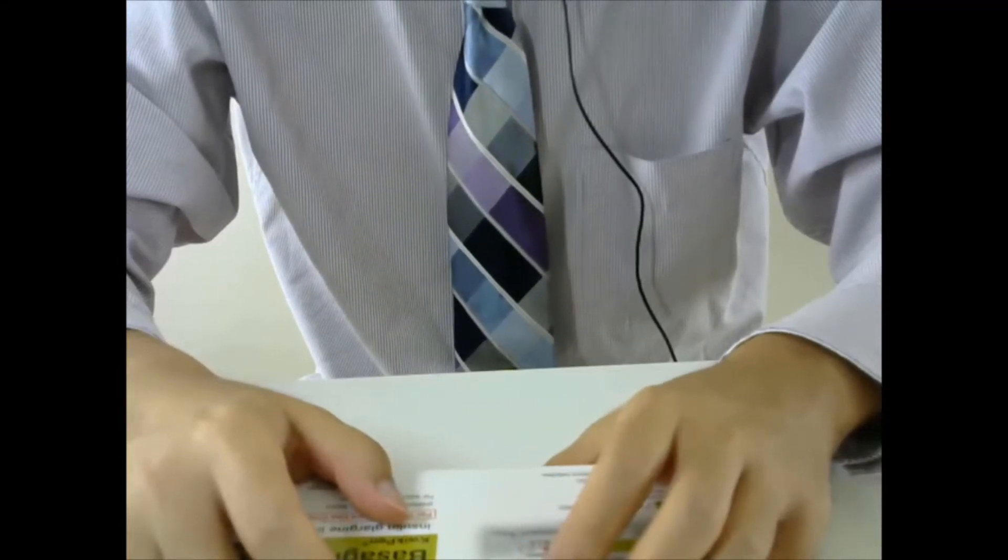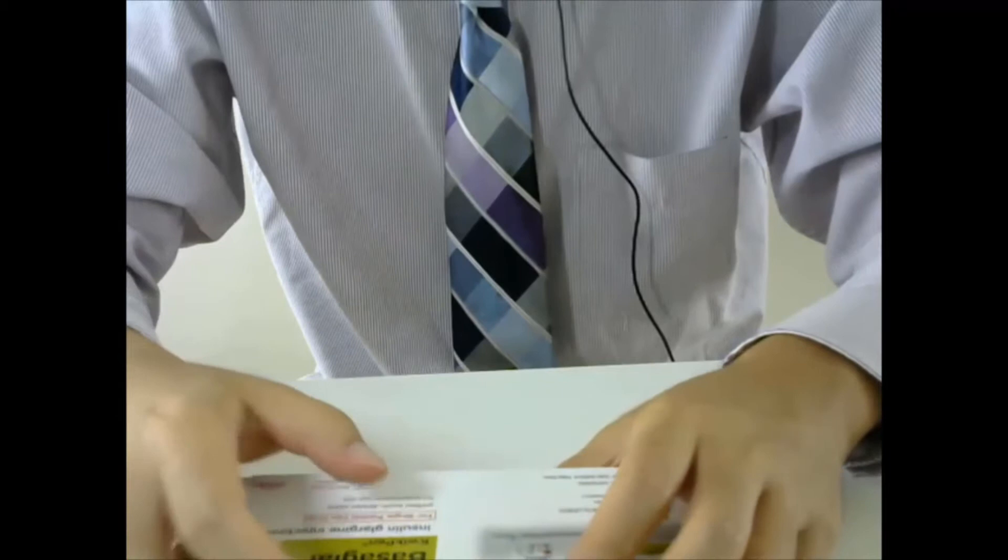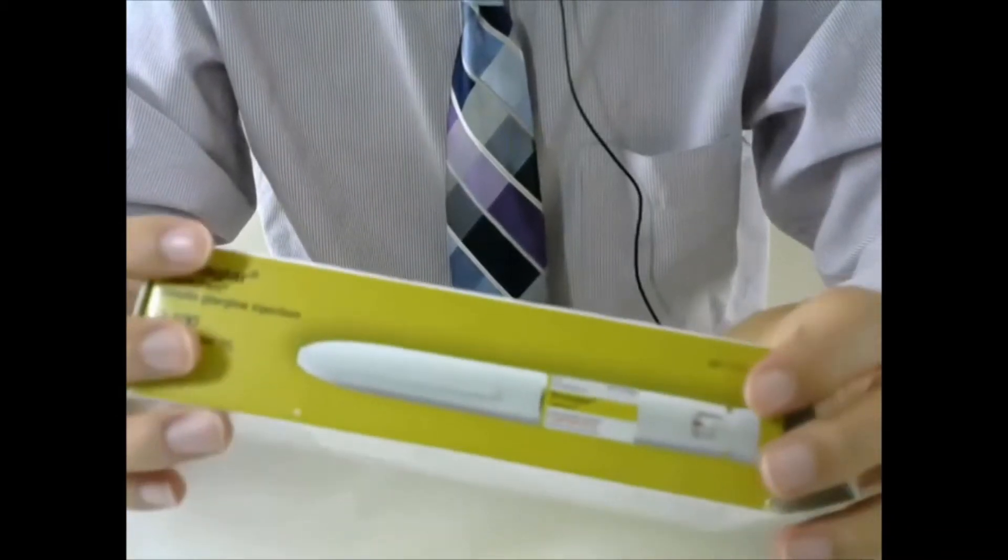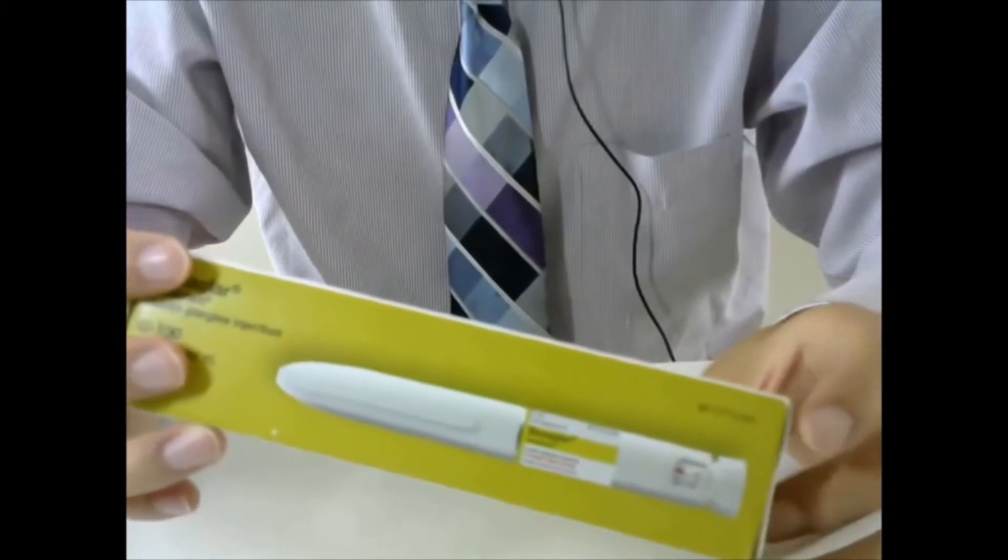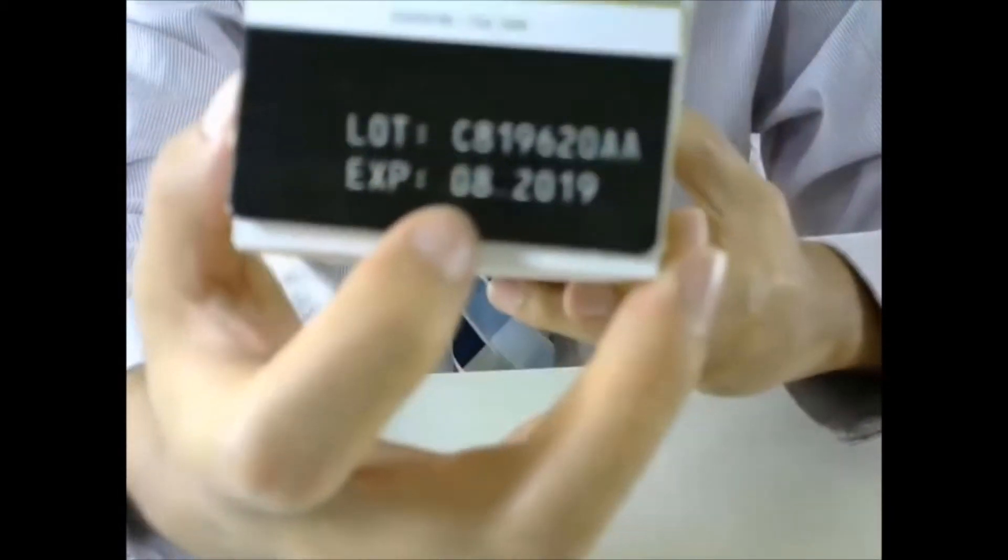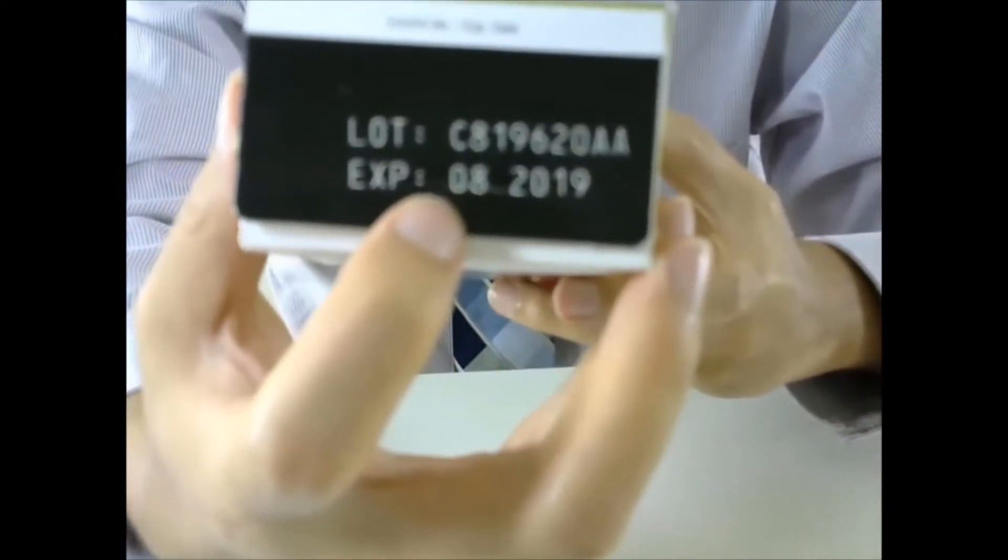In this video, I will show you how to use the insulin pen. Here I have a box of insulin pen. The first thing you need to look at is the expiration date. Make sure the insulin is not expired.